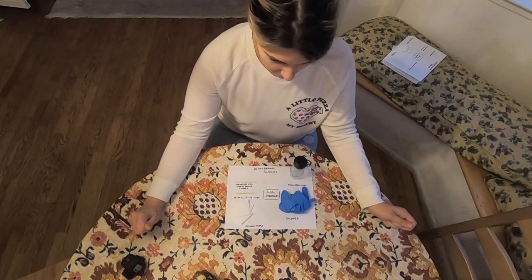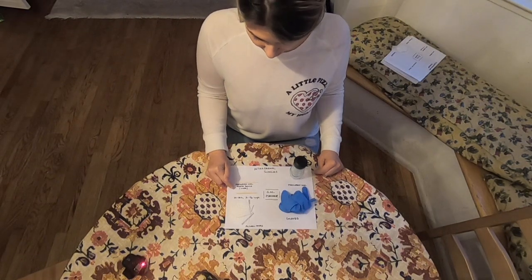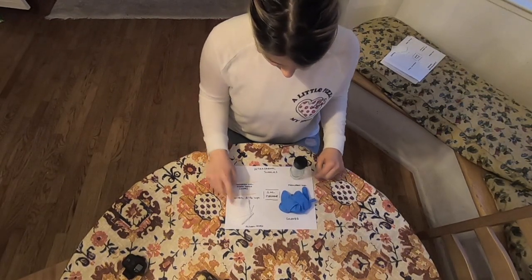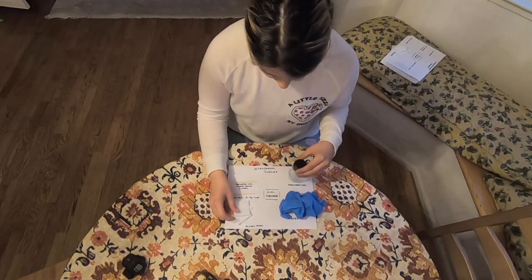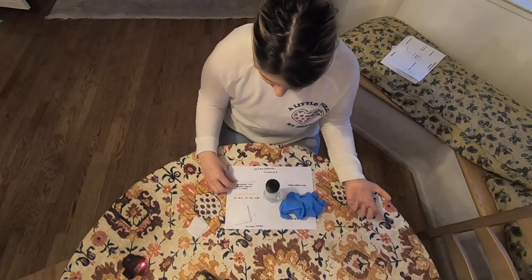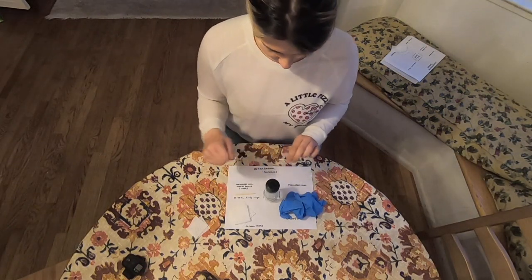Intradermal injection administration setup. Supplies needed: a needleless vial access device (NVAD), a 25 to 28 gauge needle one-fourth to five-eighths in length, alcohol wipes, gloves, the medication vial, and a 1ml syringe. Clean the top of the vial with an alcohol wipe and allow it to air dry. While drying, set up the needleless device to the syringe and double check the medication. Then pull back the air that you need.